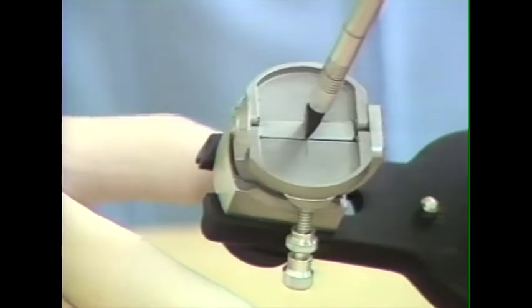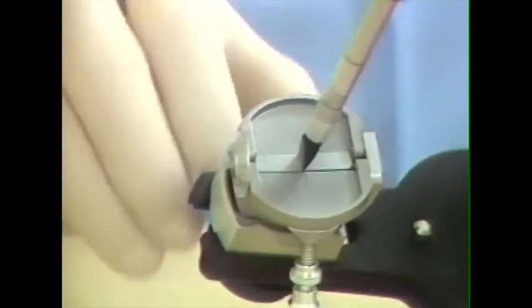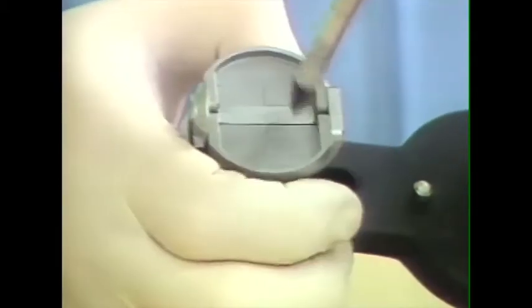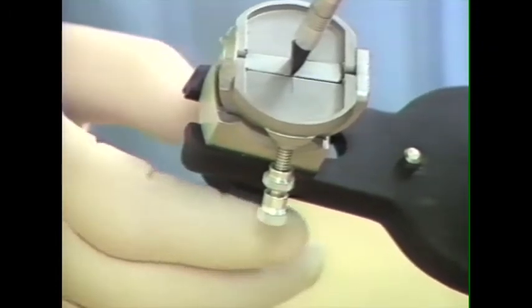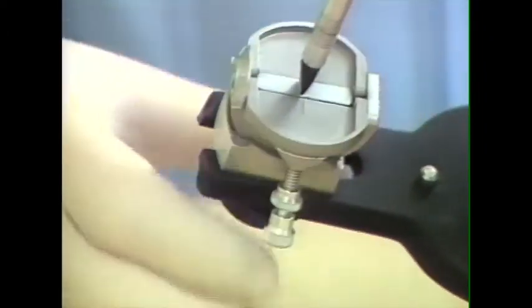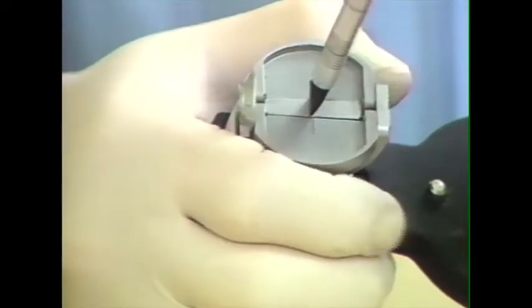The incisal guide table is adjustable both anteroposteriorly and for the lateral rise. It also is removable, and a custom incisal guide table can be substituted. It has a marking on the center of the incisal guide table that allows the incisal guide table to be varied without changing the vertical dimension. There are separate screws to lock the incisal guide table in place and a separate one to lock the inclination.